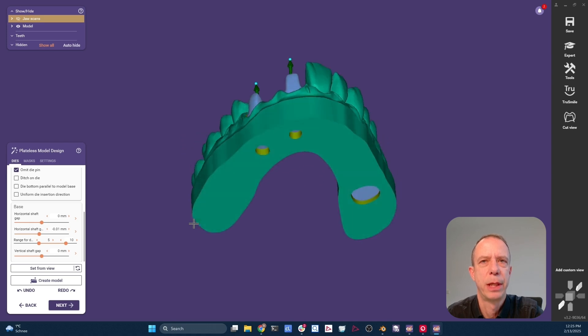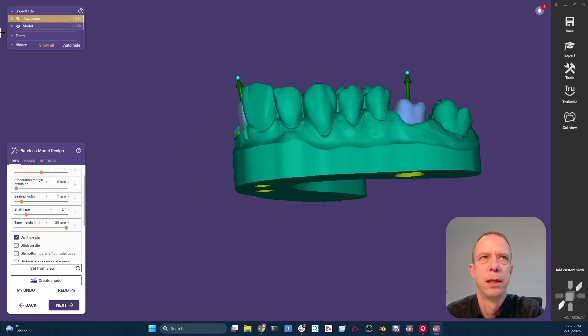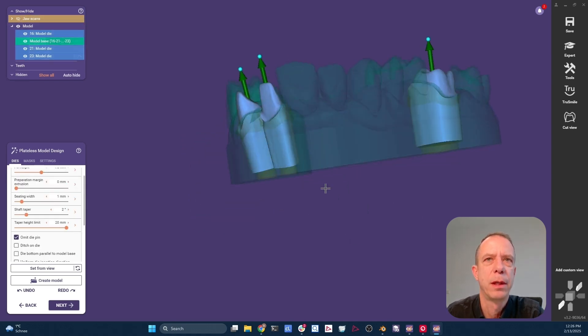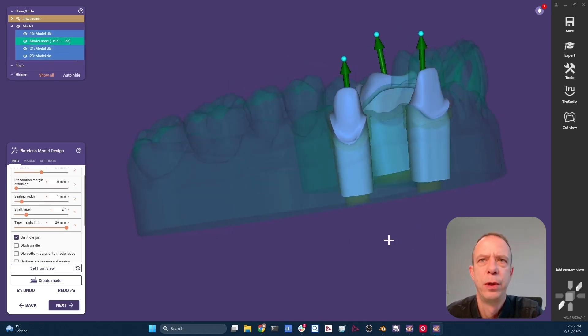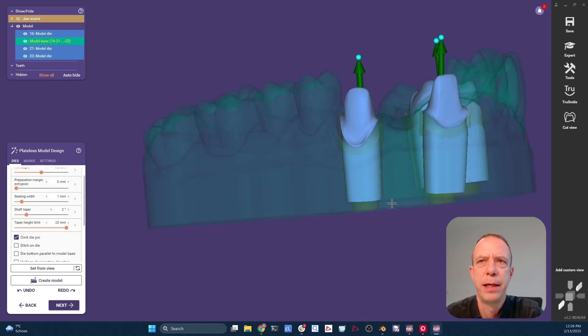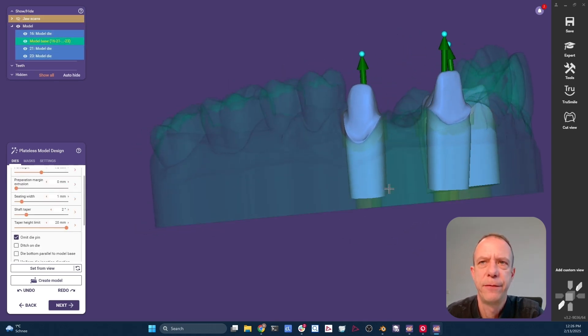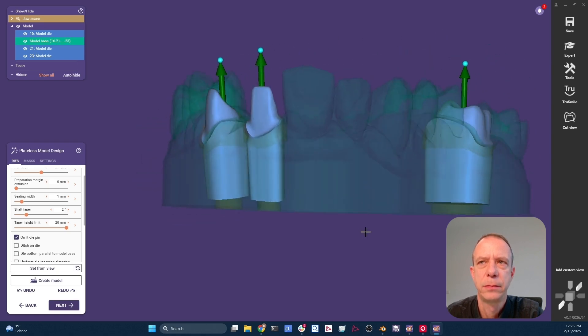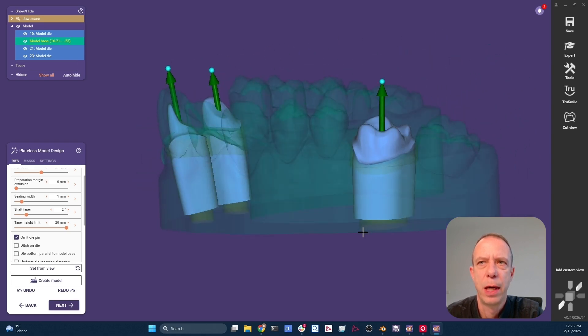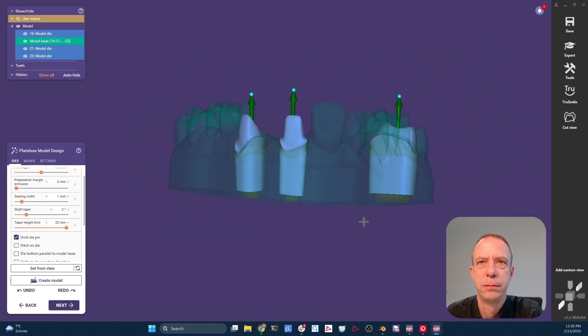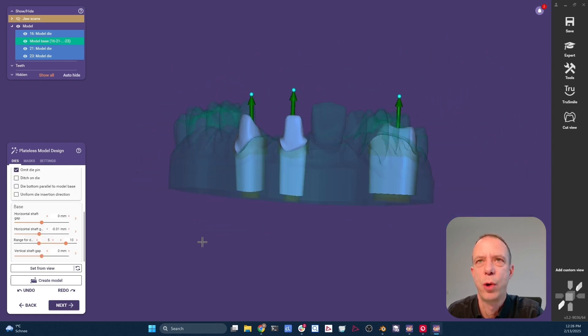Let me show how this works. Great. So here we are. And if we are going to hide the model, you have a better view on the dies. And you see they have a very slight taper, which is going to help us control the friction. So we always get the same friction.